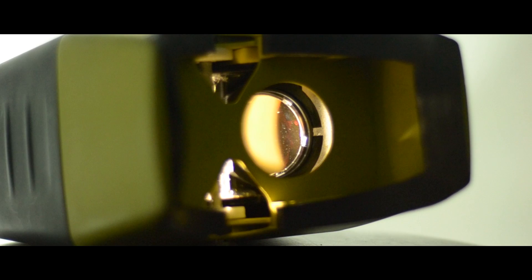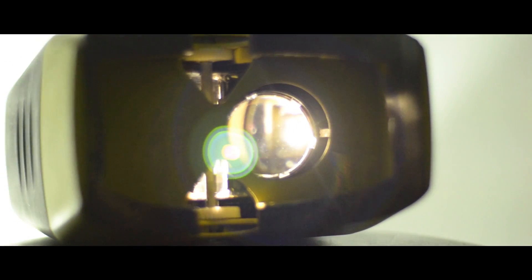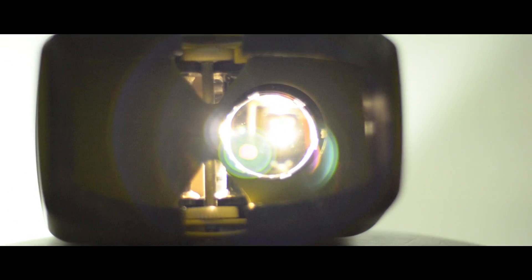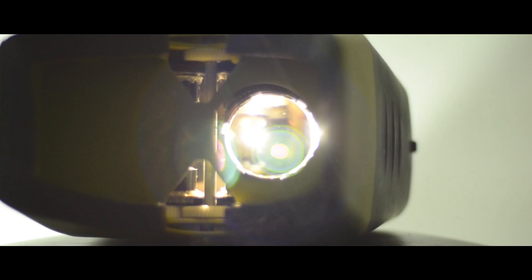Although eye care services have become increasingly available, diagnosing diseases like diabetic retinopathy is still a challenge in many parts of the world.